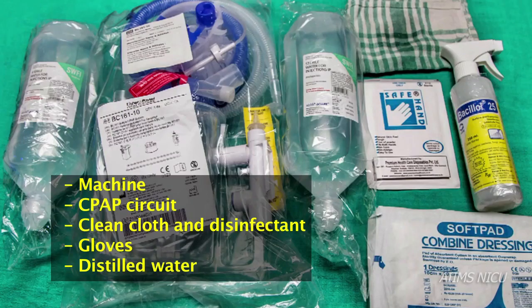The preparation includes assembling the machine, bubble CPAP circuit, a cloth and disinfectant for cleaning the machine, gloves, and distilled water.